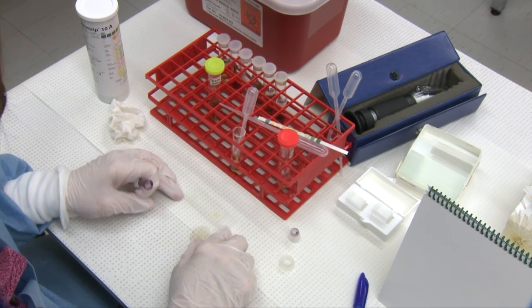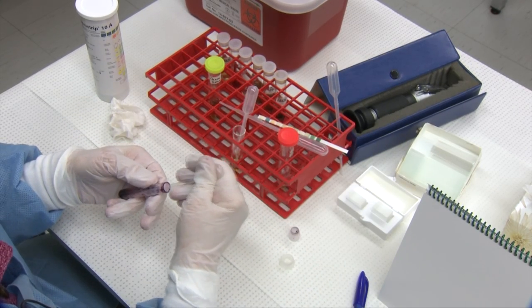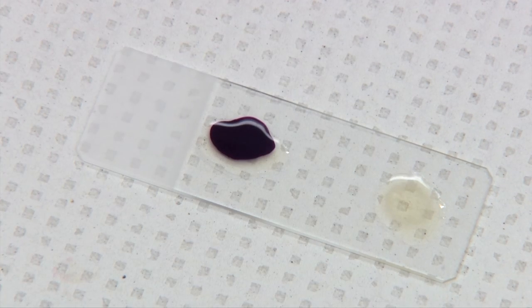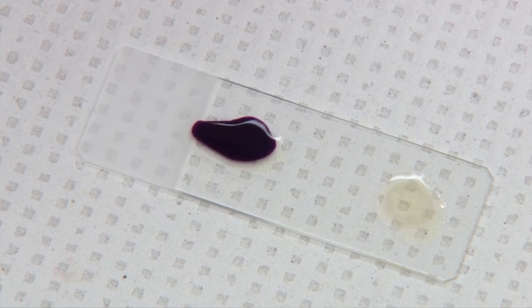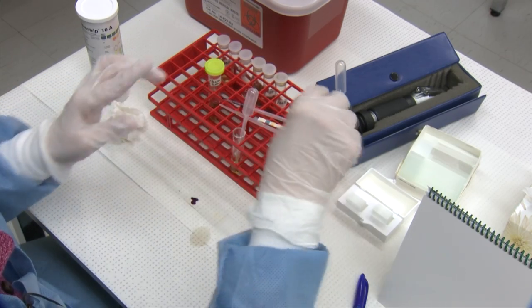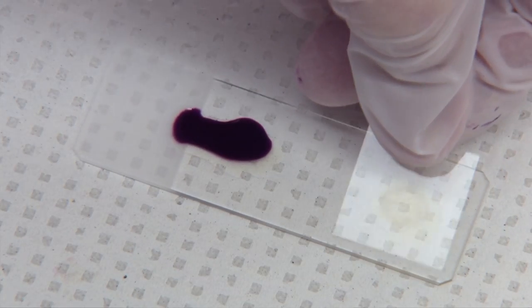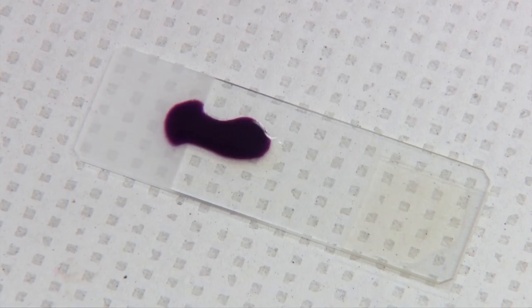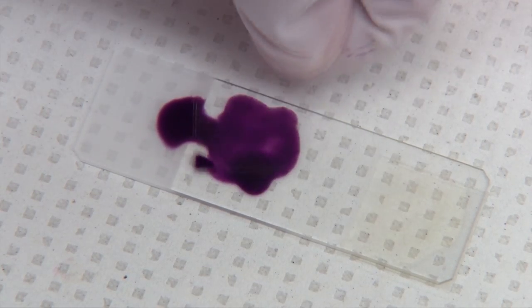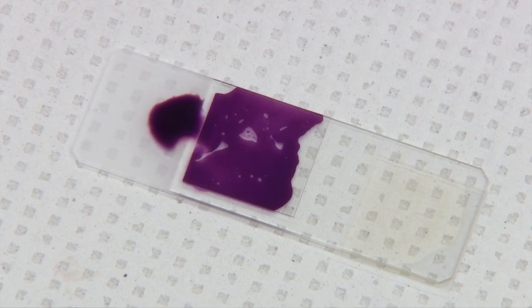Put two drops in two spots on one slide, and to one of those drops you add a drop of SEDI stain. We aliquot our SEDI stain into little containers — that way there's less chance of contamination and we don't contaminate the whole bottle if there is bacterial growth. Cover slip both drops; for the drop with the SEDI stain, mix the stain and the sediment together with the edge of the cover slip, then cover slip it and you're ready to go to the microscope.